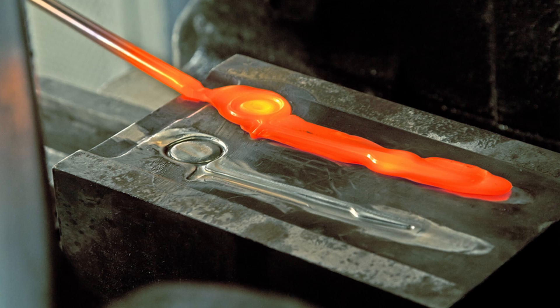How are instruments even made? Instruments nowadays are made from different formulations of metal depending on the company and the design. You might have heard things like stainless steel grade 300 or grade 400. Stainless steel is the outer layer — it's corrosion resistant, withstands high temperatures, and is 100% recyclable. Instruments are first born by liquid metal being forged and stamped, put into a mold, and then cooling procedures are done in certain fashions to ensure the integrity and strength of the instrument.